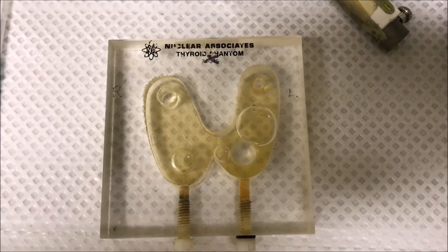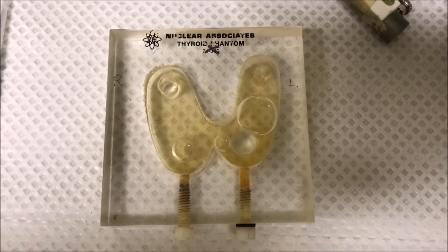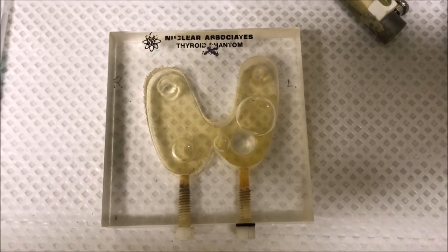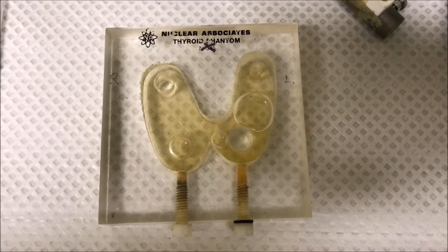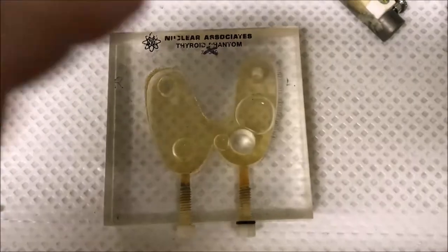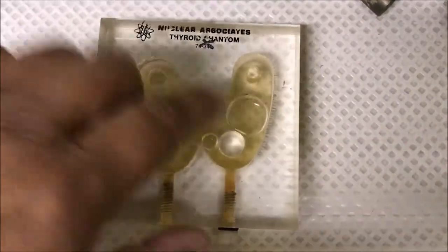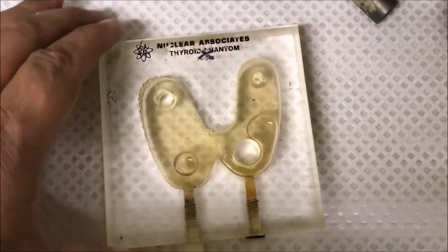This is going to be the experimental setup for experiment one, where we're looking at the thyroid phantom. So this here that you're looking at is the thyroid phantom. You can see a little bit of an air bubble in it — we use that for mixing, so I've left that in there deliberately.